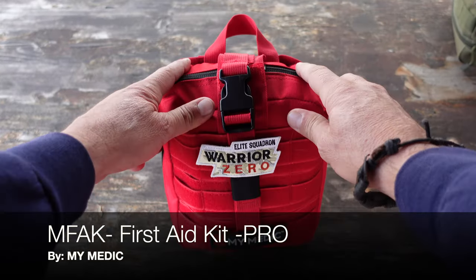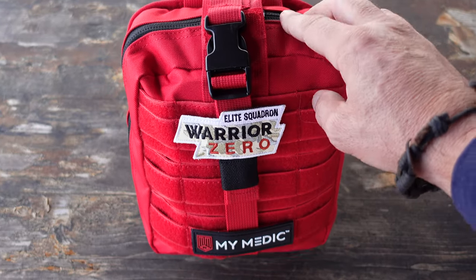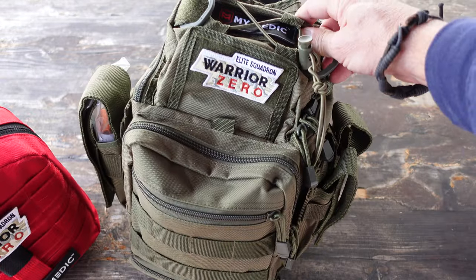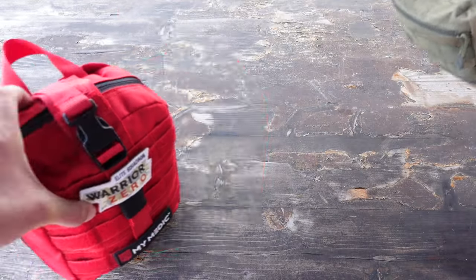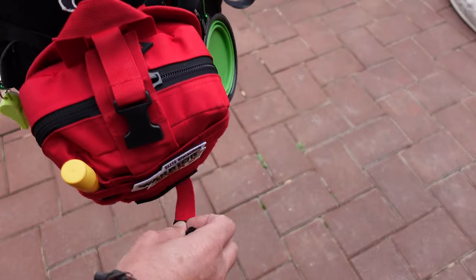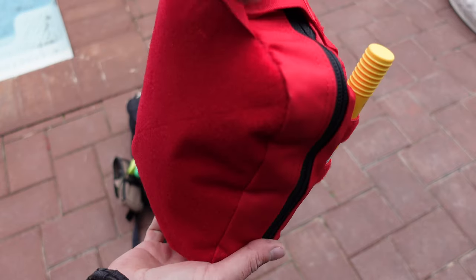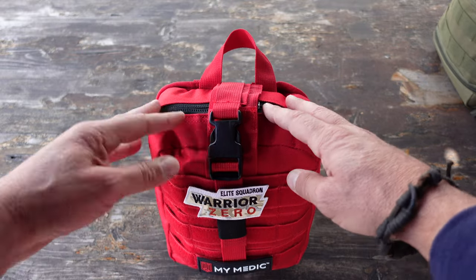Hello, it's Helder here and today I want to talk to you about this new first-aid kit that I added to my gear. It is the MyFAK first-aid kit by MyMedic. I've been a fan of MyMedic for quite a few years now — I own their recon kit which has served me well over the last couple of years both in and out of the field, even for home applications. When it was time to add a new first-aid kit, I went right to MyMedic, saw the MyFAK, thought it was above and beyond what I needed, and decided to place my order. The reason I feel strongly about MyMedic is not only is all of their stuff top quality with a lot of thought going into it, but that comes from their experience.